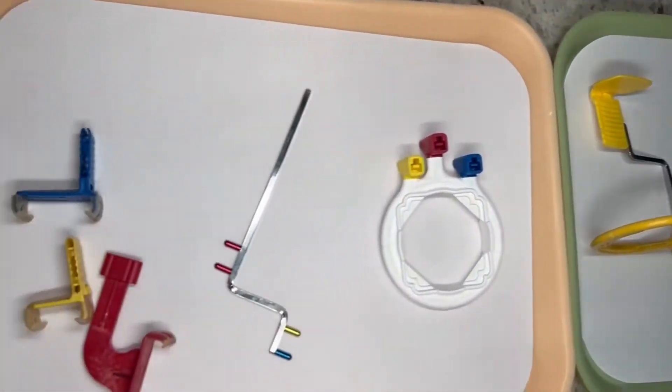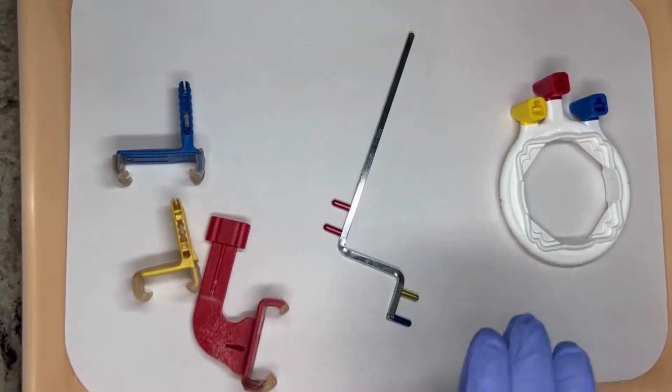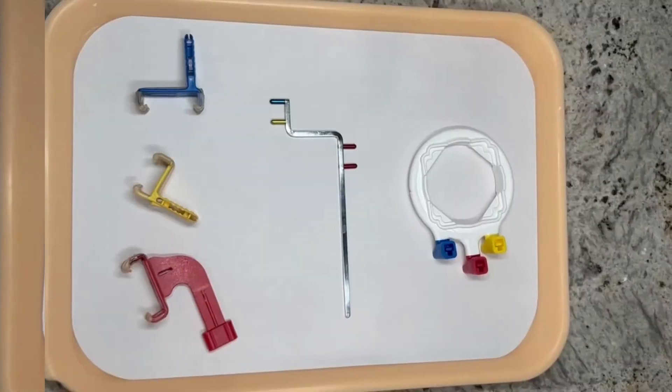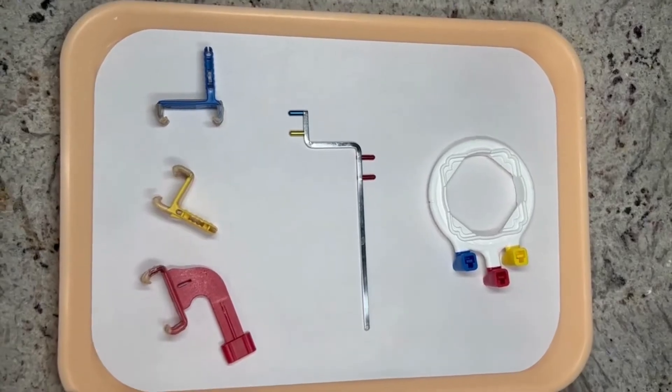Today we're going to show you how to assemble the three-in-one rings. So this one, as you can see, is a little bit different.